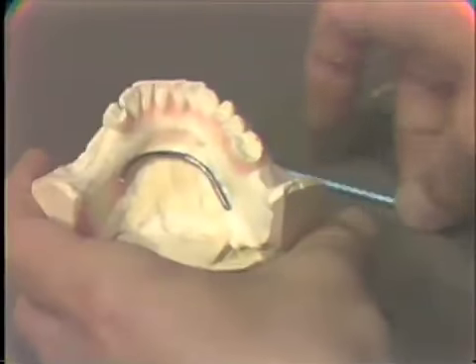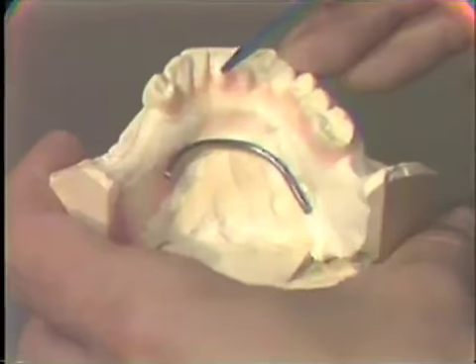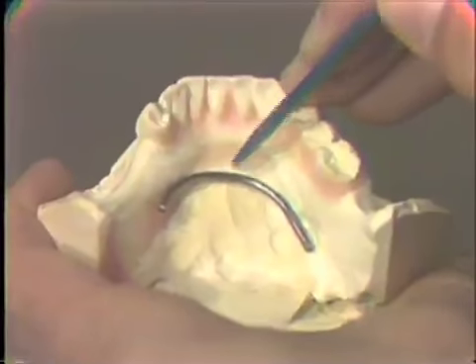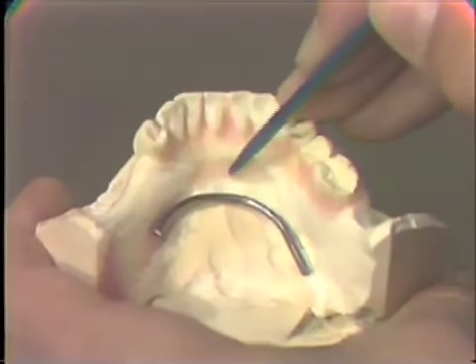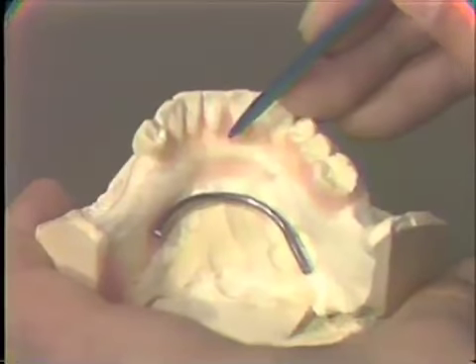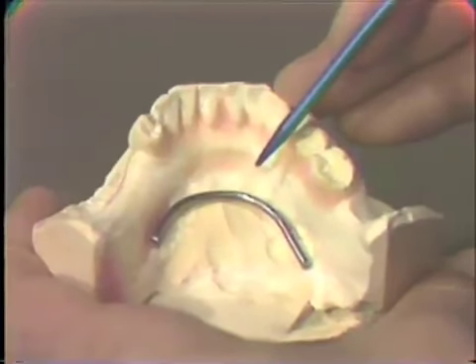Now, if there is a large space between the teeth and the floor of the mouth, the less need there is for this reinforcement, because that means there would be more acrylic. Now, if the patient has a particularly high frenum attachment, say somewhere in this area, that would leave a very, very narrow area of acrylic. And so we would like to reinforce such a situation with the reinforcement wire.